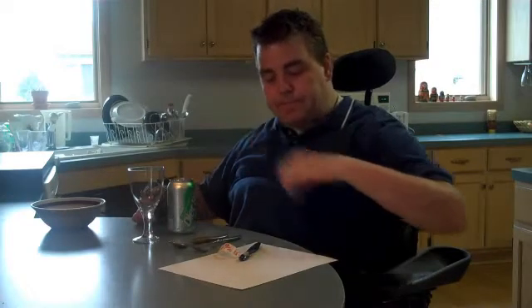It's designed for C4 and C5 quadriplegics who have a three or less muscle grade wrist extension strength — that's lifting up your wrist like this. Typically those C4 and C5 quadriplegics often will have kind of a floppy wrist. I actually had a tendon transfer in this wrist which gives me about a muscle grade 2 wrist extension.